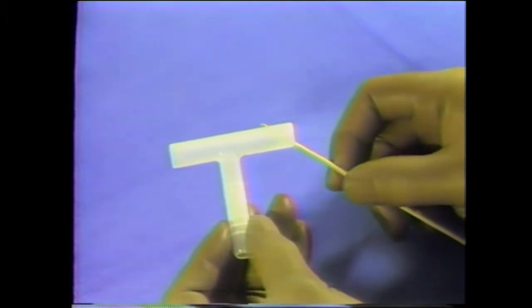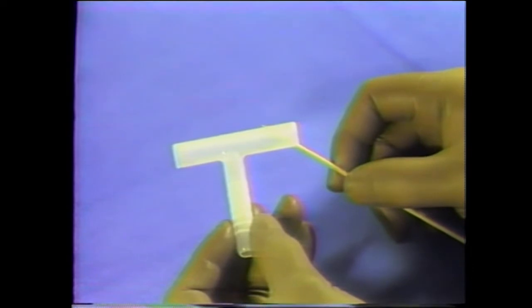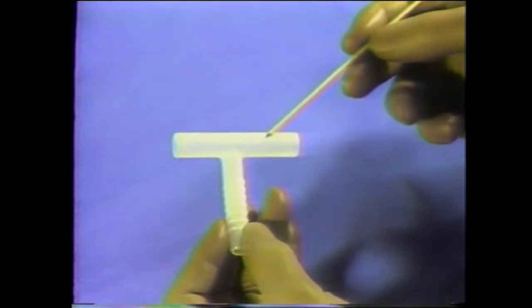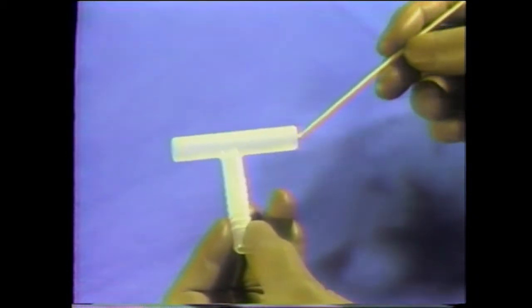Made of flexible medical grade silicone, the safety tube is of sufficient density and thickness to support a reconstituted or reconstructed trachea, and yet soft enough to preclude injury to the lining or supporting structures of the trachea or subglottic region.